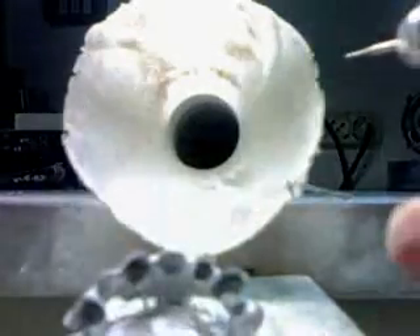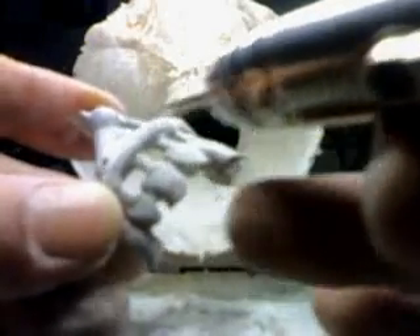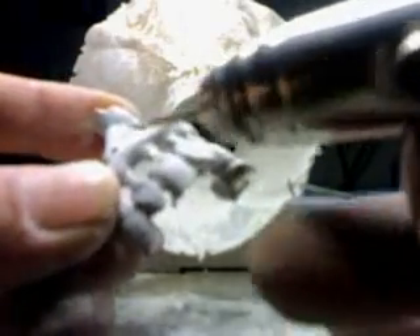I'm holding my tools so you can see as much as possible. The lighting should be better now. You see this on the casting — it's showing that the cooling system is perfect, because this part is going to be a reservoir for the rest of the casting, which needs to be cooling first in this area. So the reservoir always gives metal for the density of the coping.